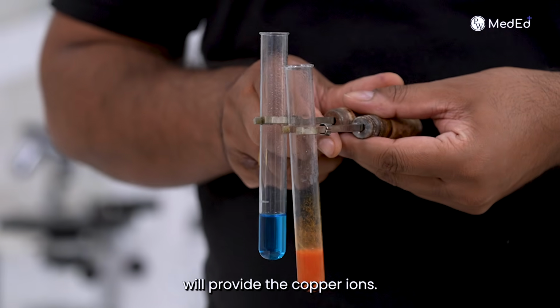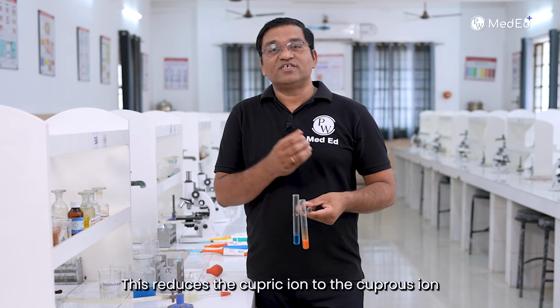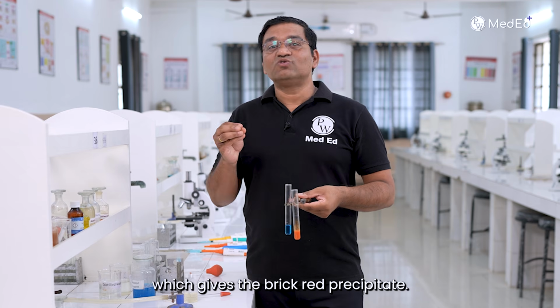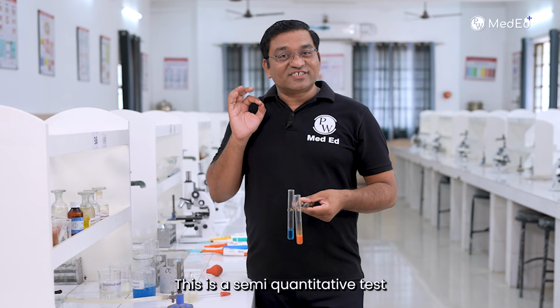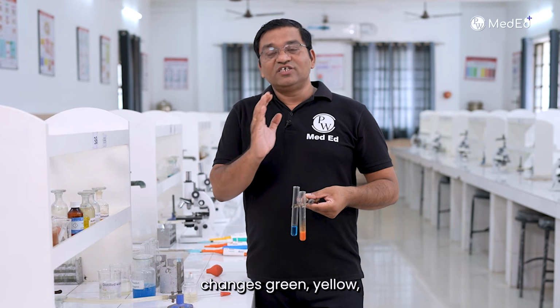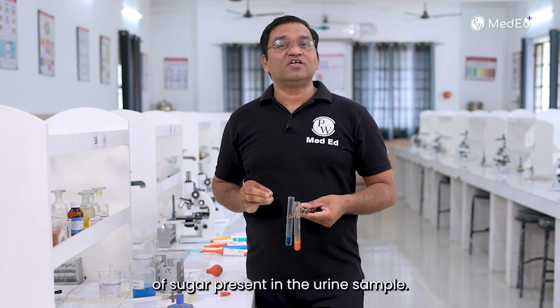Copper sulfate will provide the copper ions and because of the reducing property, sugar forms enediol in hot alkaline medium. This reduces the cupric ions to the cuprous ions, and cuprous oxide formation is there, which gives the brick red precipitate. This is the semi-quantitative test. Why do we say so? Because depending upon the color changes, green, yellow, orange, red, brick red, you can tell about the approximate amount of sugar present in the urine sample.